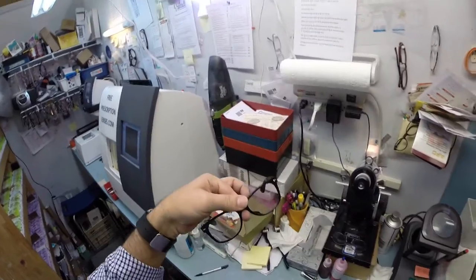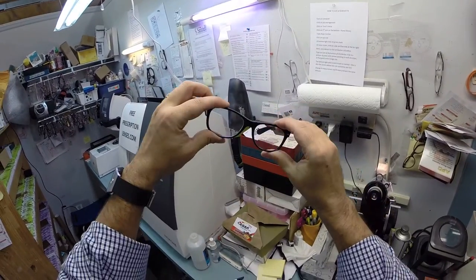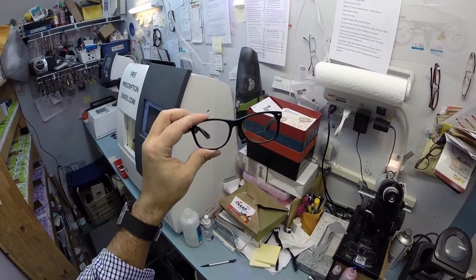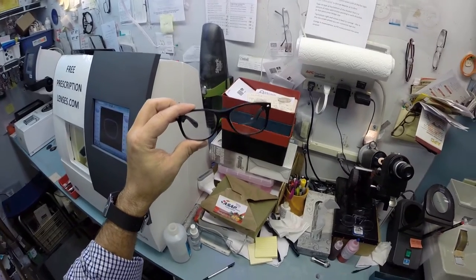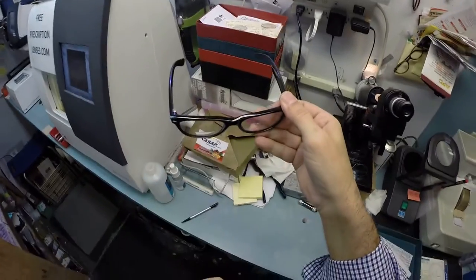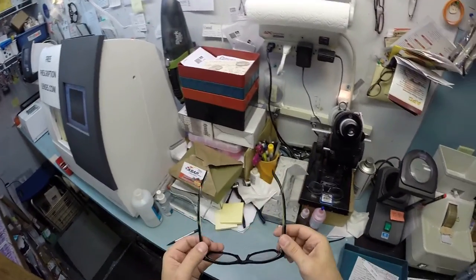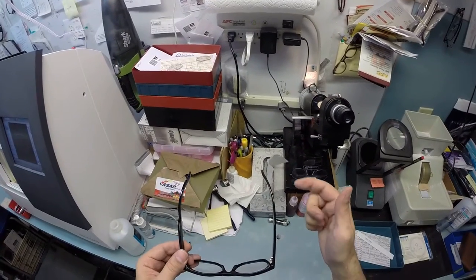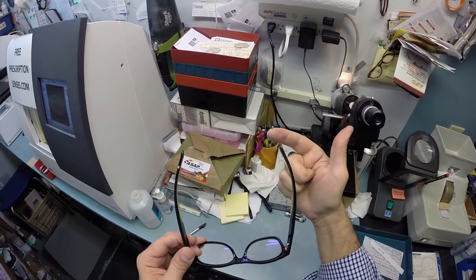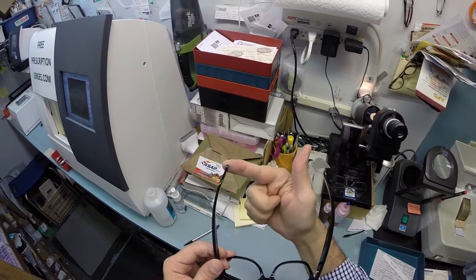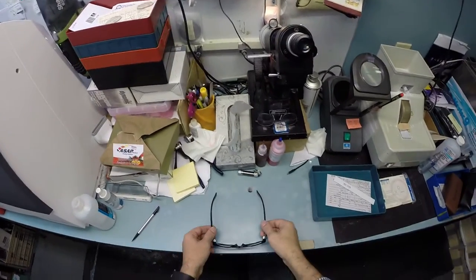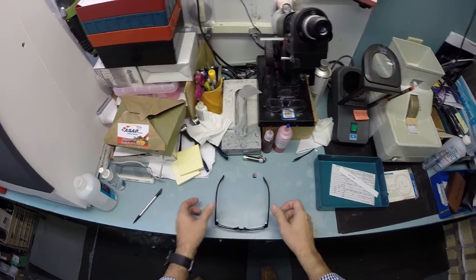Now, when you get these in the mail, there's a small chance that these could be too loose or too tight. However, there's an 80% chance that one side is higher than the other. That's because 80% of people have one ear that's higher than the other. And because of that, 99% of all optical shops do free adjustments if you ask them. But I'm going to get them in standard alignment first, also known as a three-point stance. The three points are one, two, and the bottom of the frame being three. I set it on the counter and press down. There is no wobble.